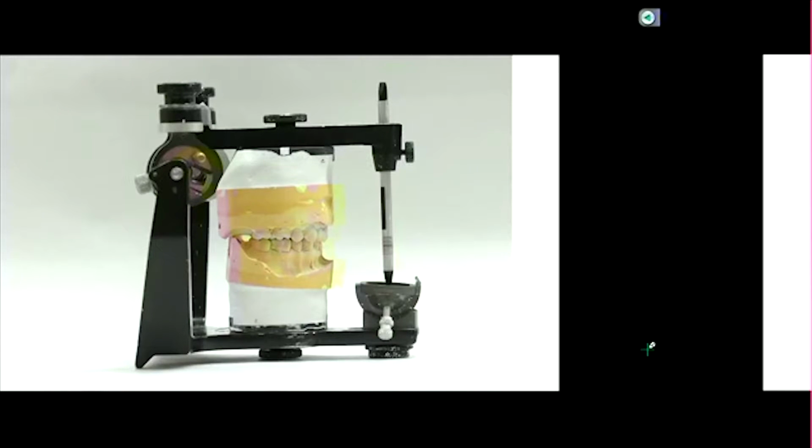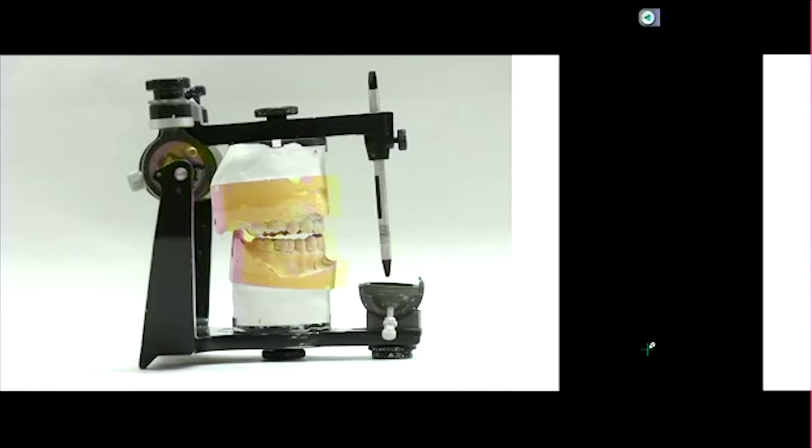Okay, so this is a cast mounted articulator. So pretend it's not a cast. Pretend it's your patient and they're just closing in MIP. So this is a picture of somebody that just has their teeth closed together. And then we'll ask them, hey, slide your jaw forward so that you're in an edge-to-edge position. So you can't really see it there, but the number 9 is in contact with the lower tooth. So they're in an edge-to-edge position.